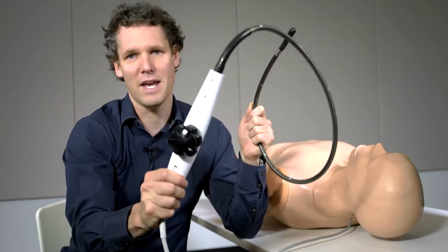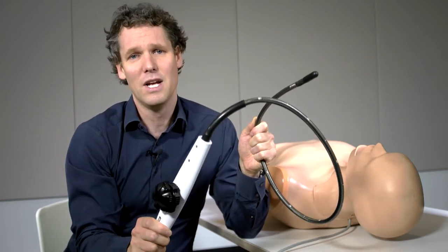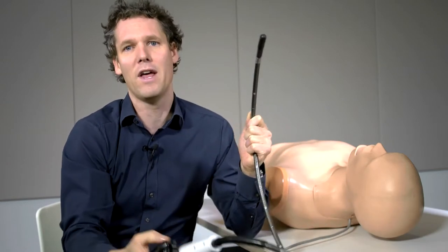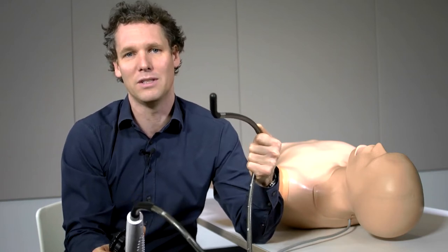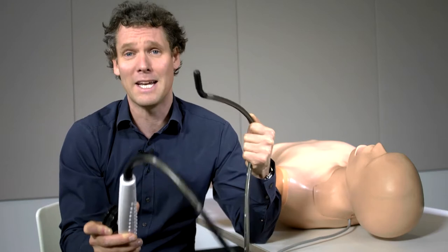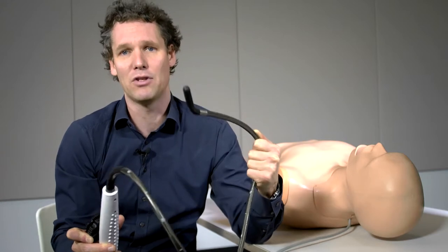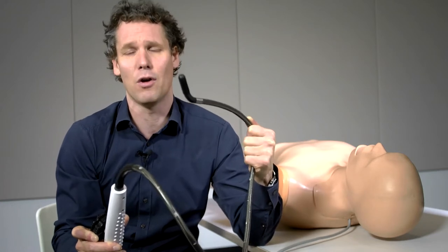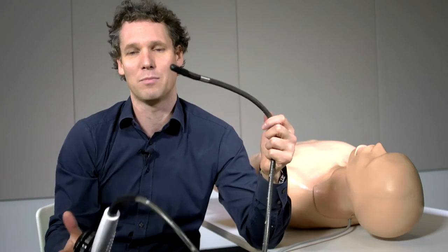The final control is the lock, a really important feature that in my opinion should never be used. It's a bar that, when activated, keeps the probe locked in a full antiflexion or retroflexion position. It's mainly used in theatres, but the risk is you forget the lock is on, it stays angled in the esophagus, and that's where you can start to cause problems. I think you should just keep it off and maintain antiflexion or retroflexion yourself.